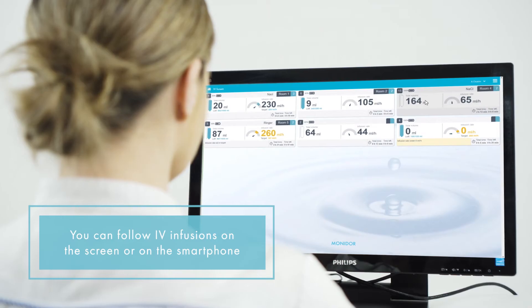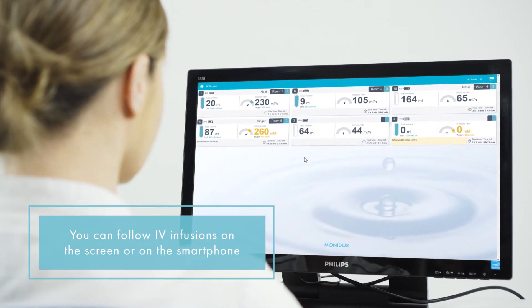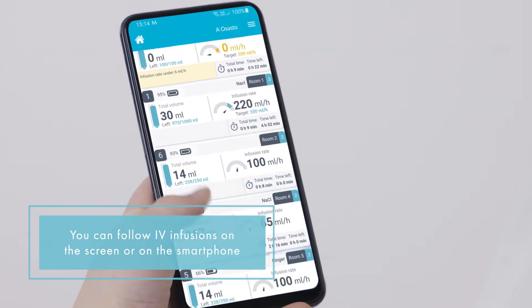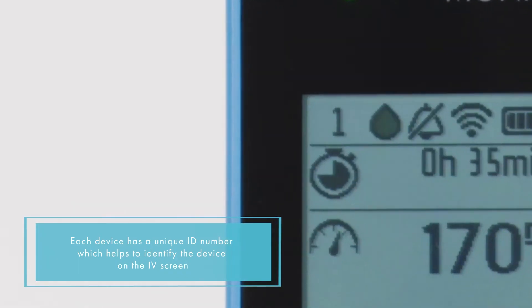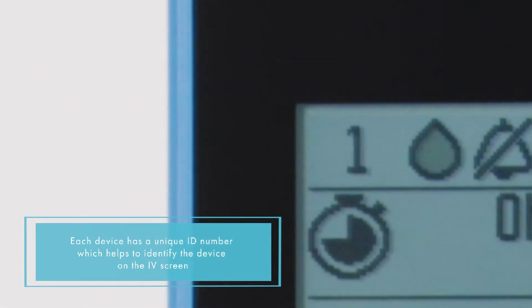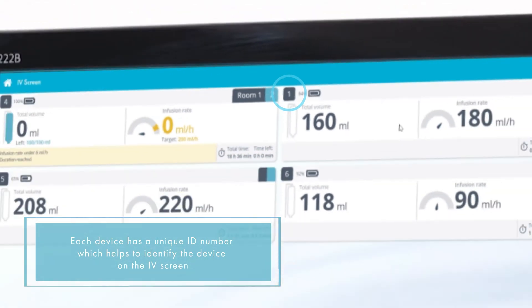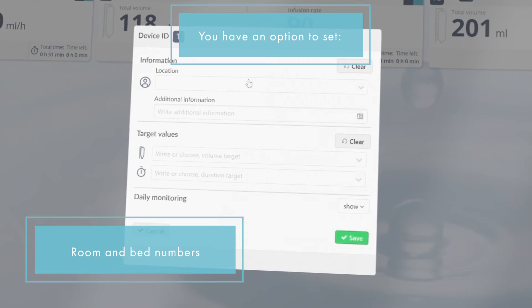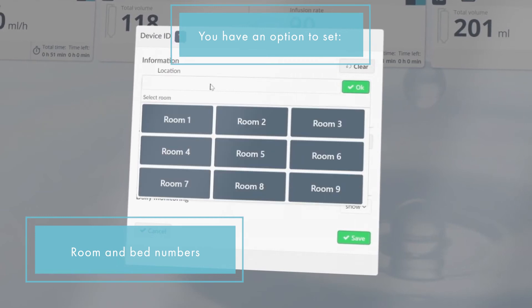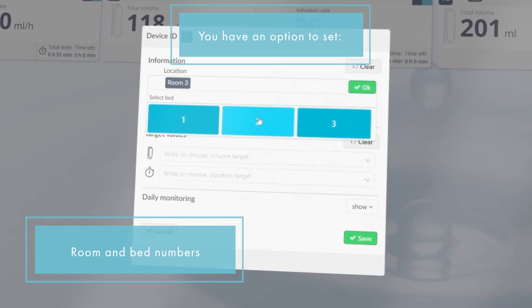When the MoniDrop is switched on, the device data appears automatically on the remote monitoring IV screen. Each device has a unique ID number, which helps to identify it on the IV screen. On the IV screen, each device can be assigned to a room location and to a patient's bed number.